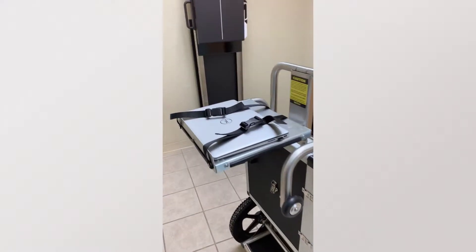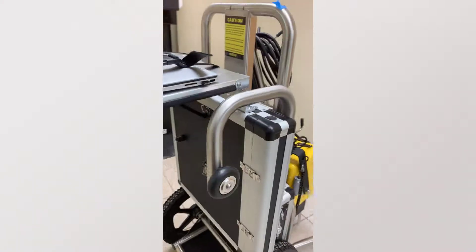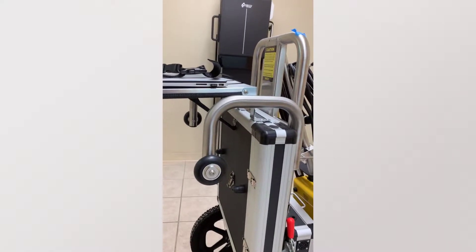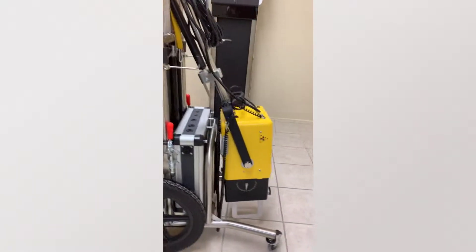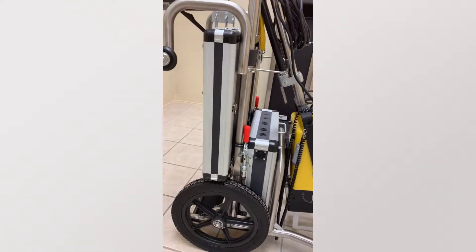As you can see, you have a place to put your laptop and strap it down. You have an additional two wheels on the back to roll into the vehicle, and another two wheels as a balancing act — big wheels.